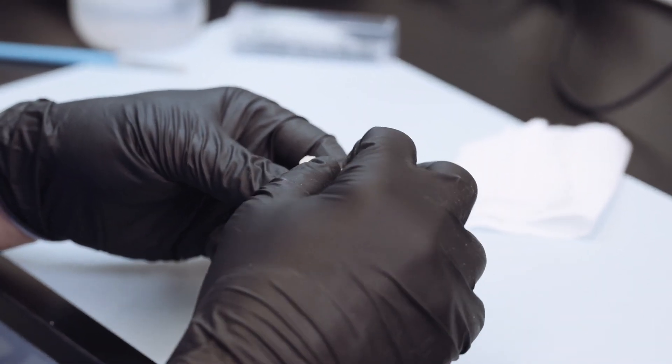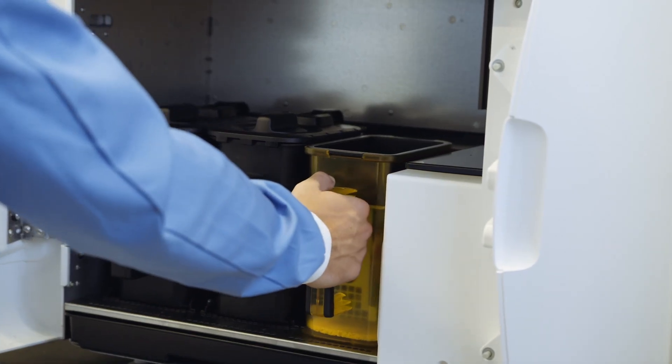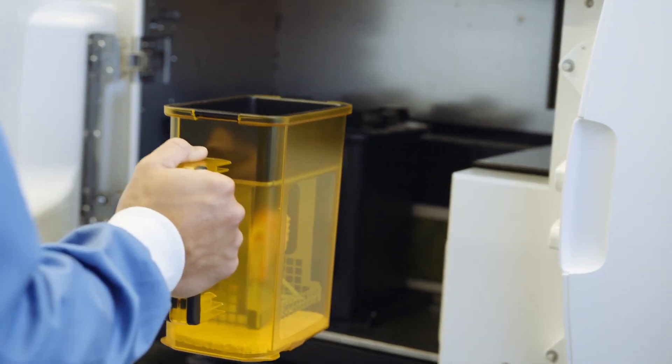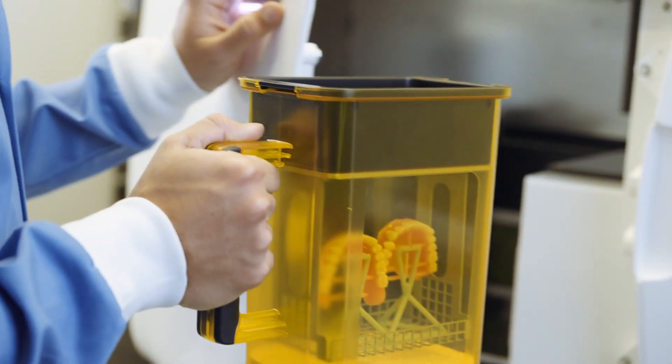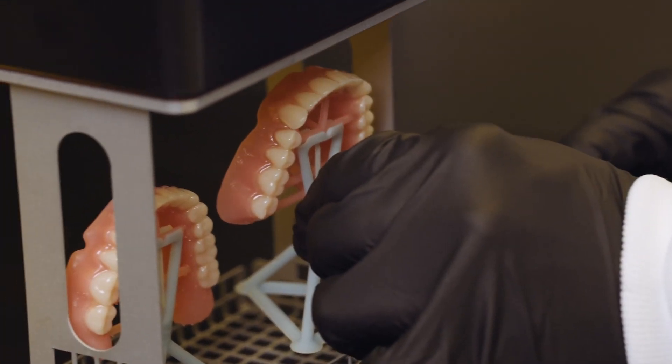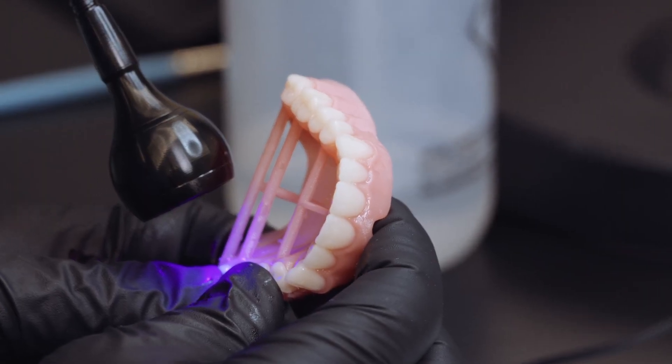The process is easier to control, it's cleaner, I have to emphasize a bit of cleaner, and it's also more predictable. We can replicate multiple times whereas if we're doing analog it's never the same, it's always different.